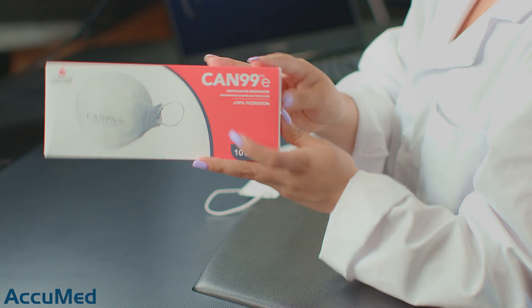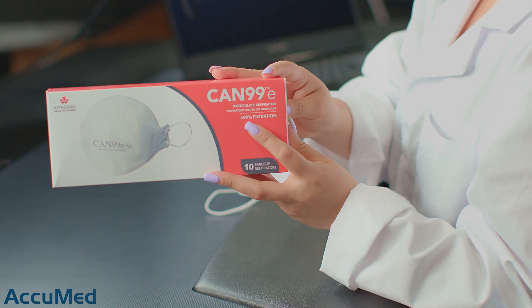These are actually the second Canadian masks we've reviewed so far. The first ones had the words 'N95' in the SKU but they weren't legitimate NIOSH-approved N95s. We're not completely sure if Canada has any standards for respirators — if any of you know those standards, please let us know in the comments. According to research we did, Vita Core created this mask called CAN 99 — it is a trademark. Basically, they're claiming these are the Canadian version of N99, which is an American standard claimed to be greater than or equal to 99% filtration.